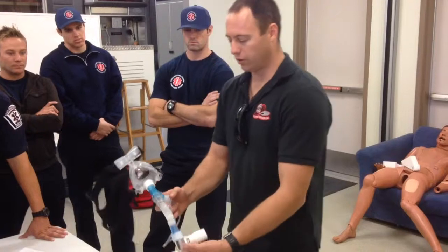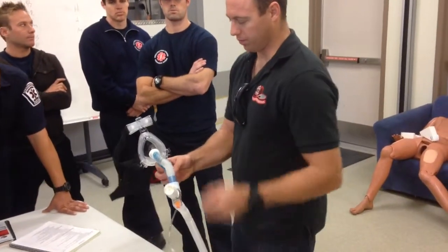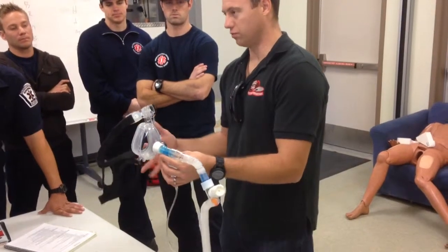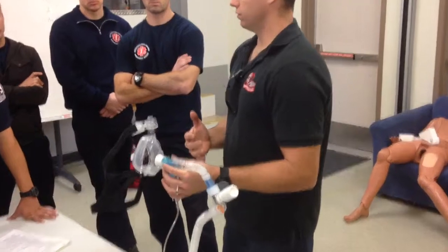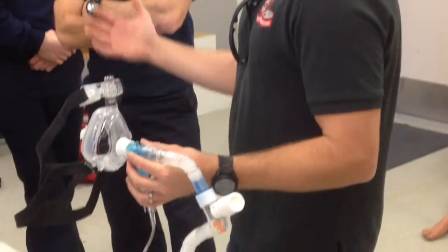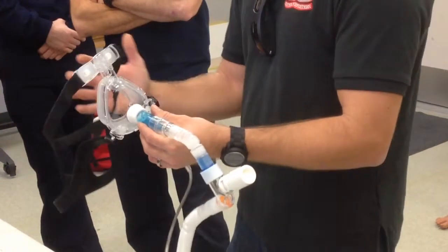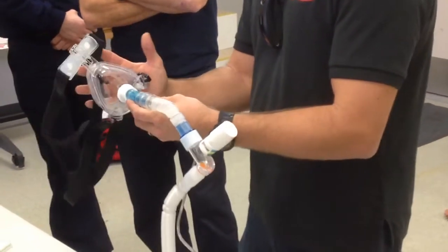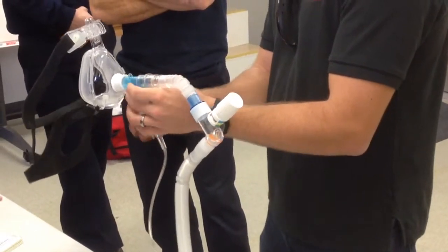Misting, right? So what I have personally noticed with this all the way up, this at 6 to 10, if somebody's breathing at 26, 30, 40, 60 times a minute, which is common for a respiratory call, they're going to be breathing too fast to create back pressure to allow this chamber to fill up with aerosolized medication, right?